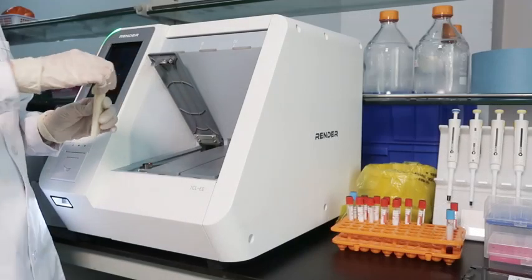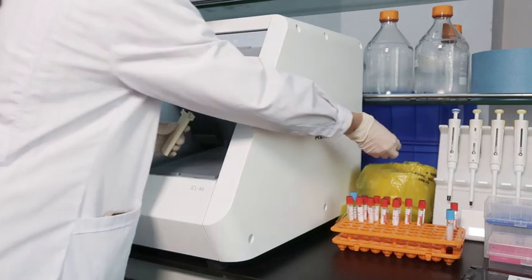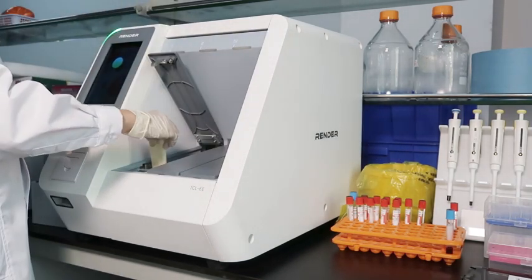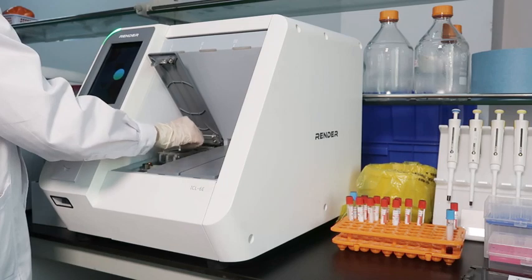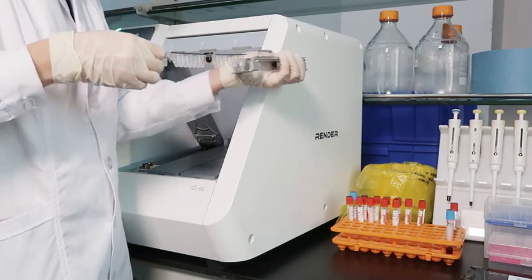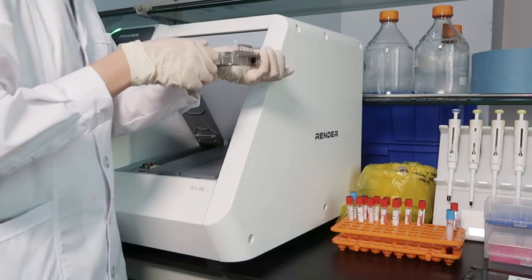Fourth, end the test. Take out the waste box from the instrument, discard the used tips, remove the reagent holder, and discard the used reagent cartridge. Put the waste box back in place.